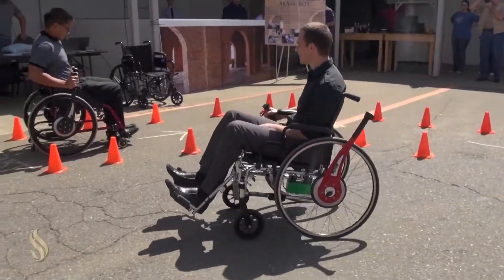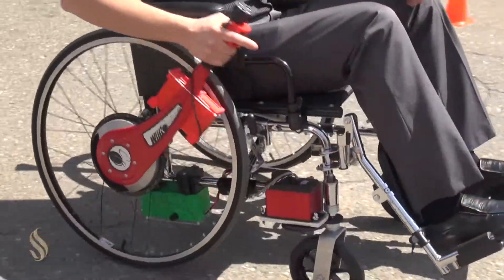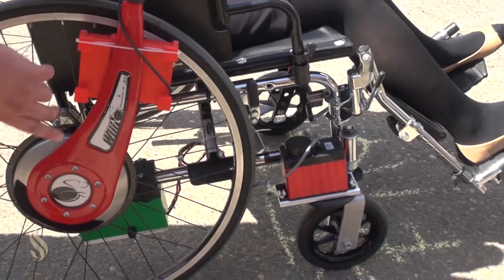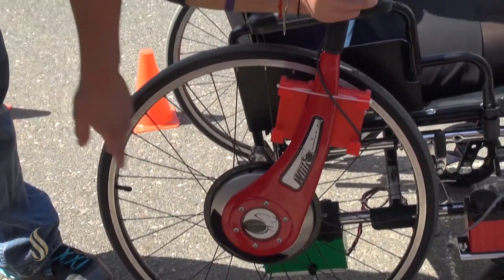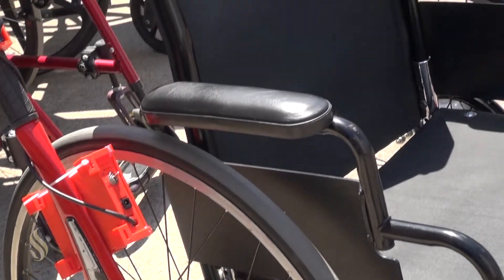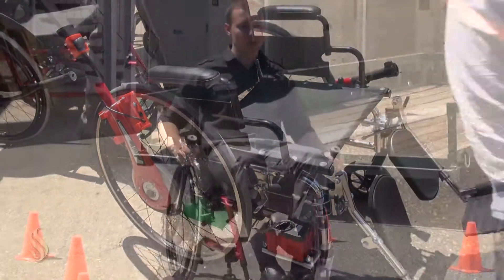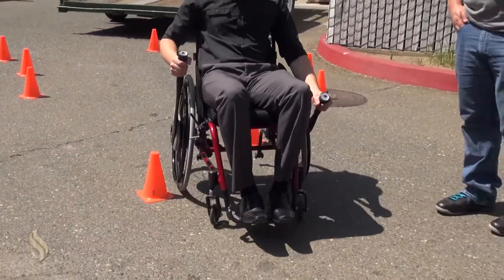The system is portable with continuous power using lightweight lithium polymer batteries, so we had to design charging circuits for the two batteries. We're using two microcontrollers and two XBee wireless units for the wireless communication between the user interface and the servo control unit. In all, we only added approximately seven pounds of weight to the actual wheelchair — we didn't want to add any more weight that would inhibit the person from normal operation.